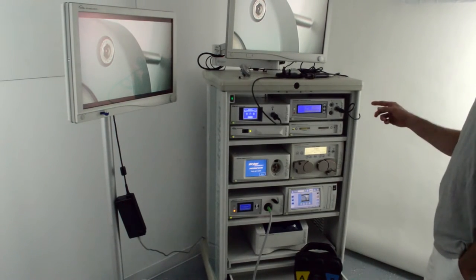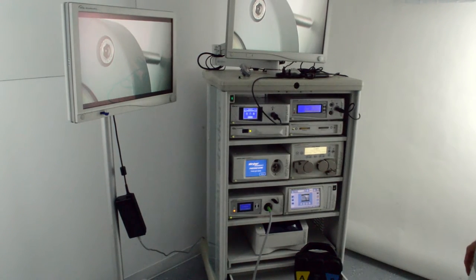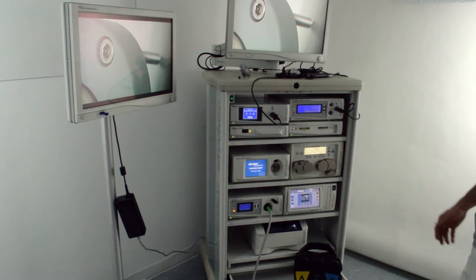This is the Stryker 1288 Multi-Specialty Cart and System. It's used for laparoscopic, arthroscopic procedures. You can also do gyne and urology as well.